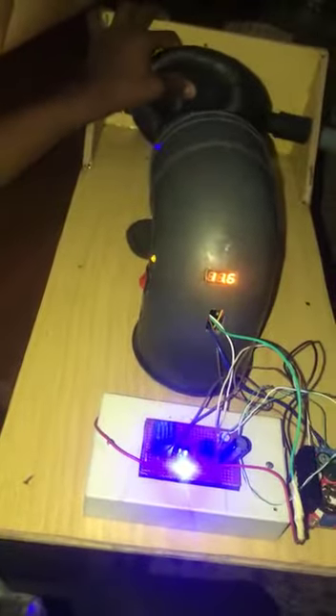We use this pump because it is recommended for use in the hospital. This is the oxygen max. Let's have a test on it.